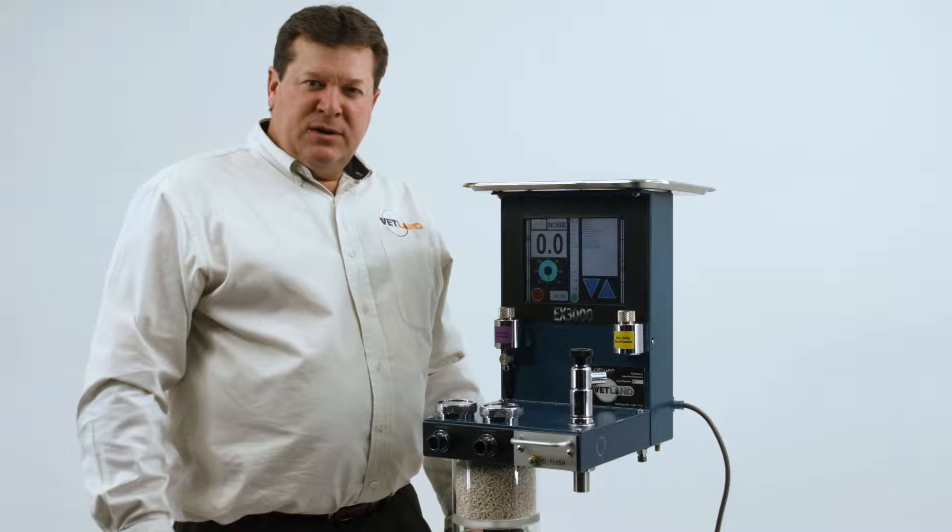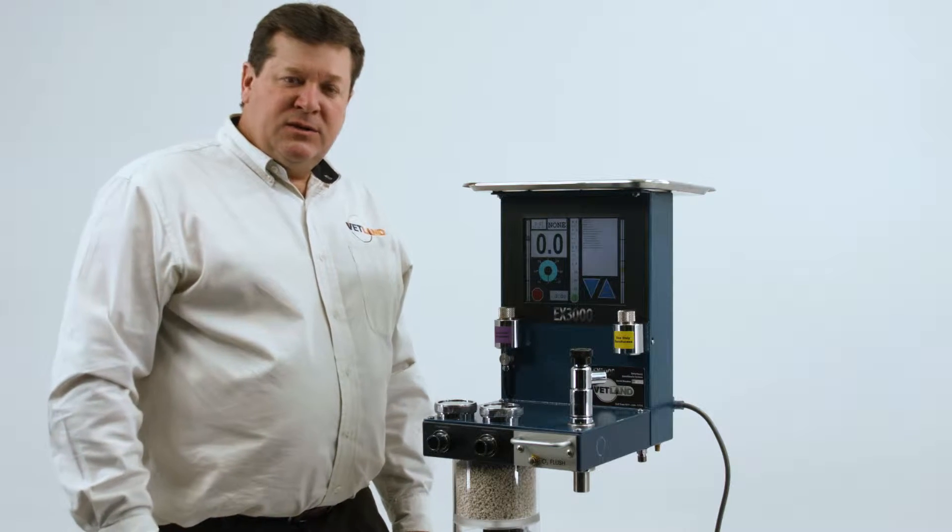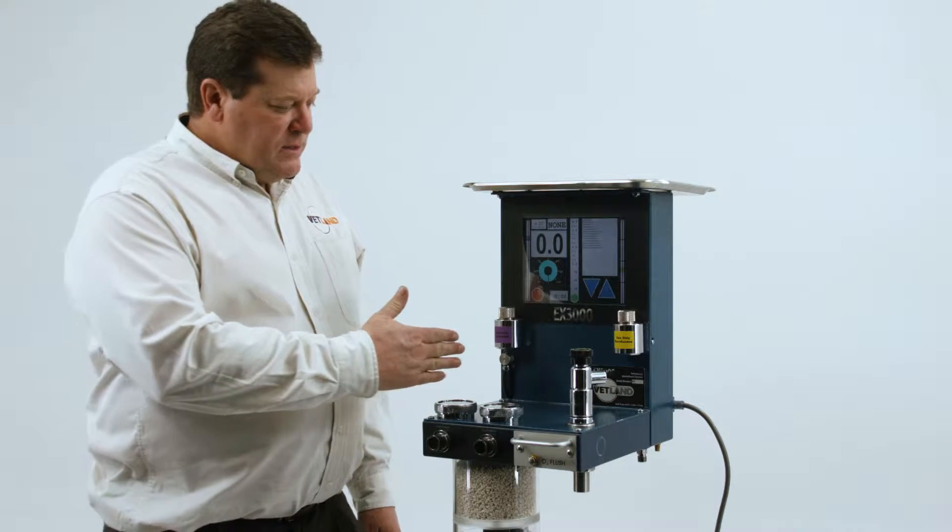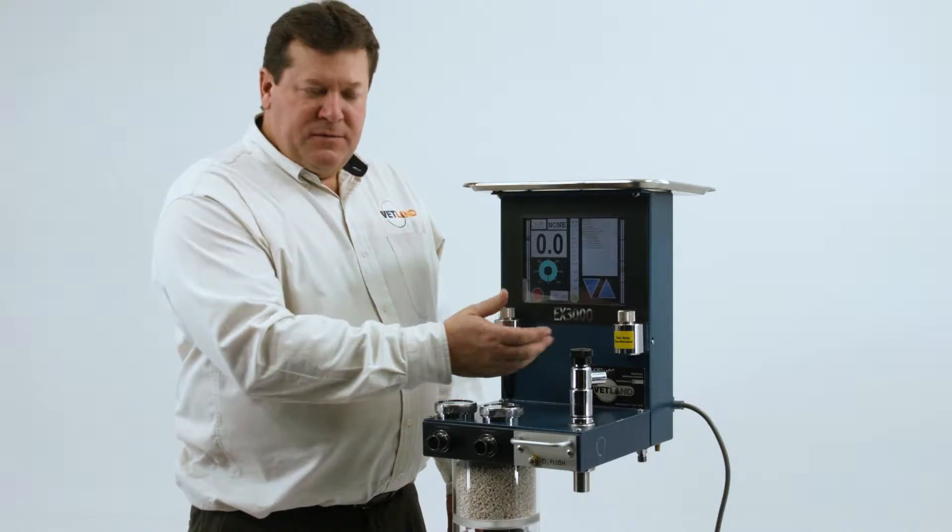In this video we're going to demonstrate how to fill the vaporizer on the EX3000. We have an isofiller and a sevoflurane filler.